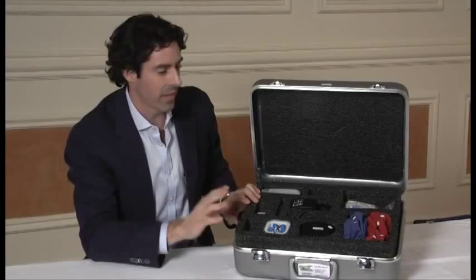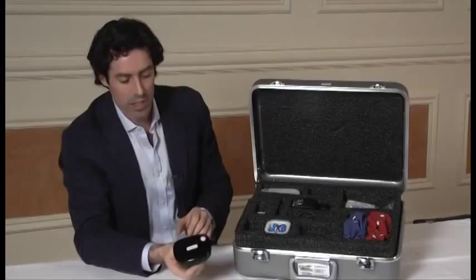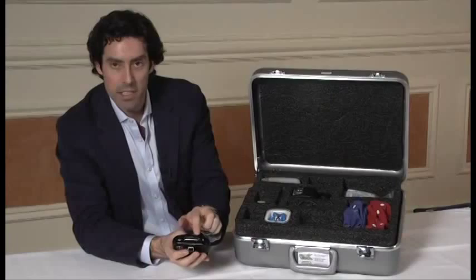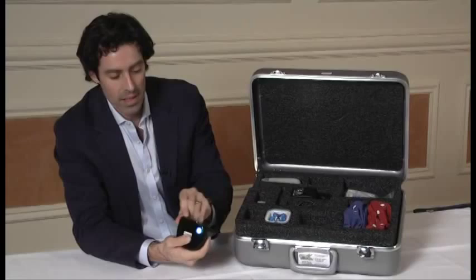Coming with two sizes, medium and large. Other sizes are available and we'd recommend having a couple of extra caps on hand. The amplifier is a small Bluetooth enabled amplifier. It has the 19 channel pin connector, charging area, and the on-off switch.